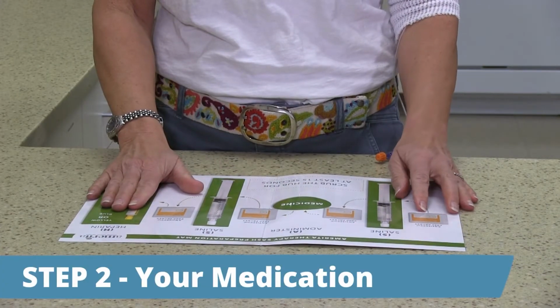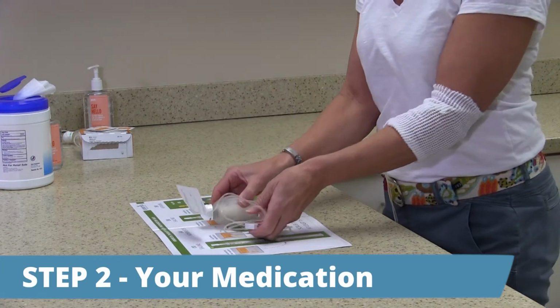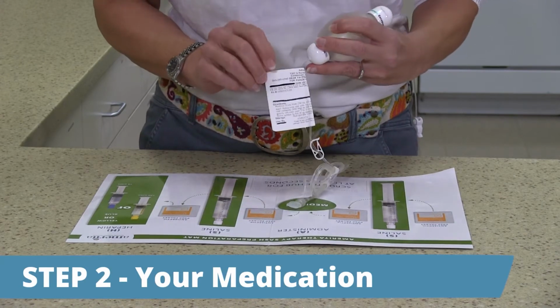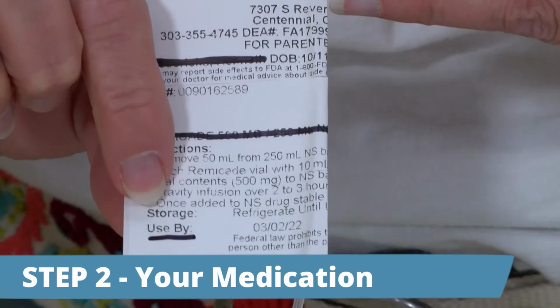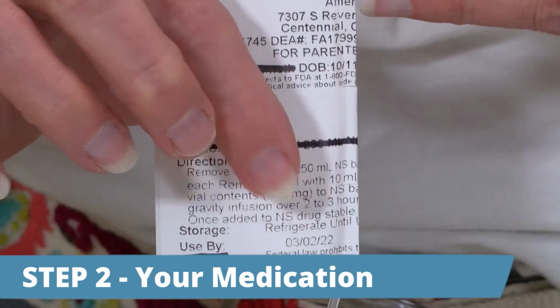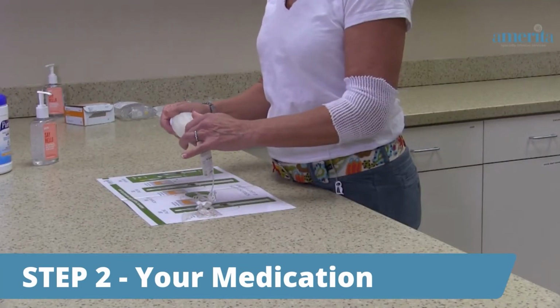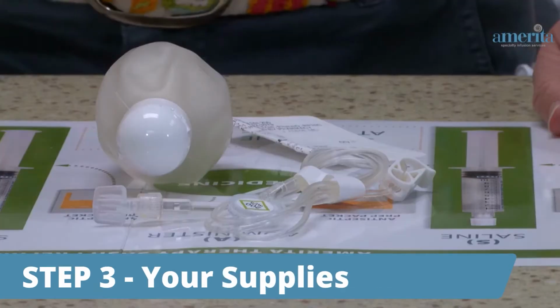Step 2. Your medication. You have removed your elastomeric device from the refrigerator and placed it on the clean SASH mat or surface. Review the label on your medication. Make sure it has your name, the correct name of the drug, and the dose. Look at the expiration date. The medication should be clear and consistent in color and free of any visible particles. If any of these are incorrect or cause you concern, do not infuse and notify your pharmacy.